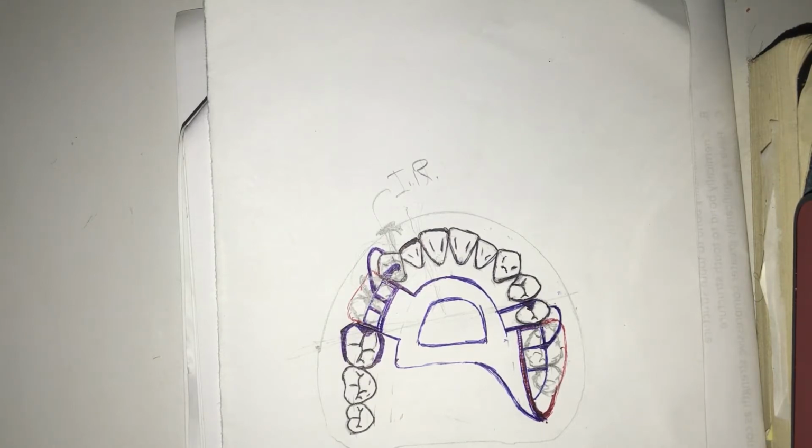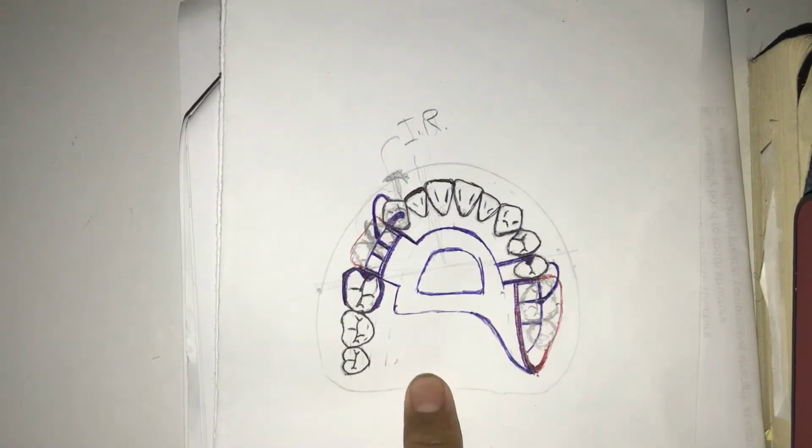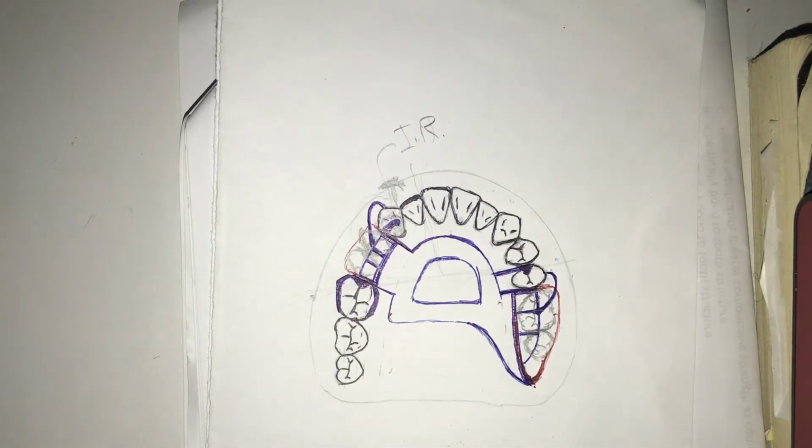So again, your work authorization is your definitive instruction to the dental laboratory. And for our RPD case, most of the time we use this type of prescription writing for them to know where certain components of your RPD are to be placed. It's because, again, it is us who sees the patient. It's our job to know where exactly to put your components depending on the case of your patient, because it's a case to case basis. You're the one who is seeing the patient and not the technician.